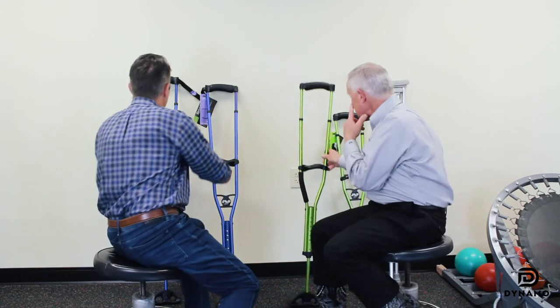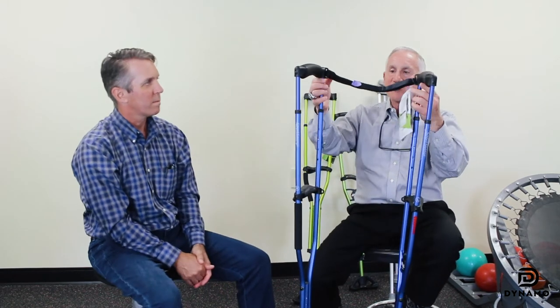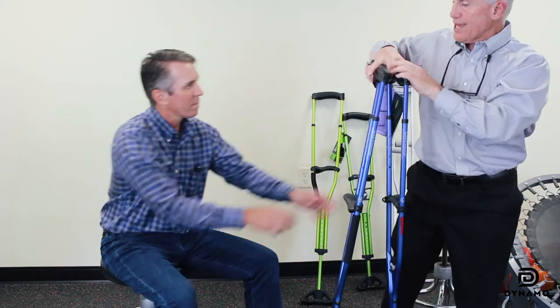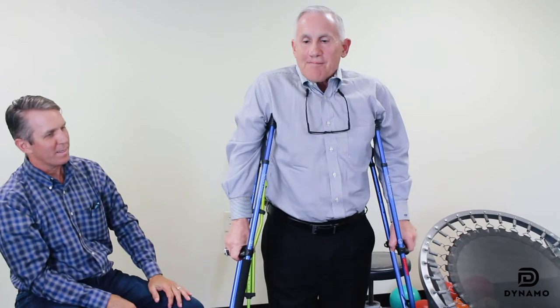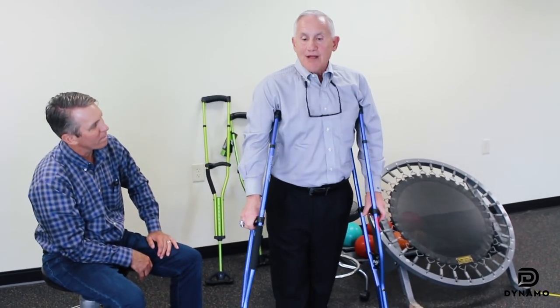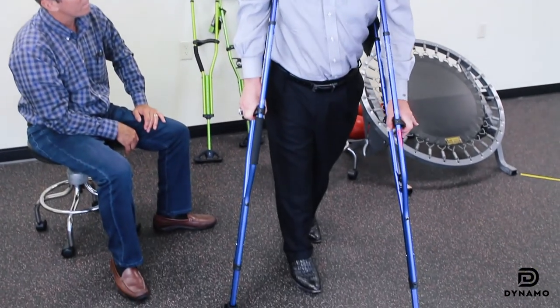I think the swing link really makes it easier, because if you're stuck in certain situations, it's a lot easier having the swing link so that I can control both of my crutches. Plus, as I'm progressing or transitioning my weight forward, it's easier so that I can control it. I can feel the pressure keeping me in an upright position, and it's helping my body transition so I can automatically bring this crutch forward.